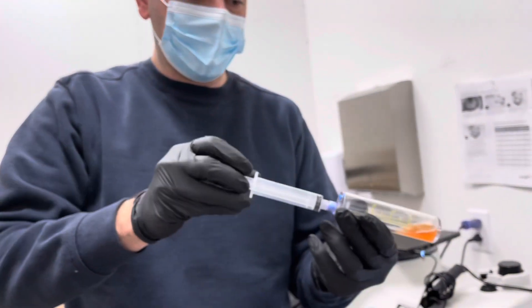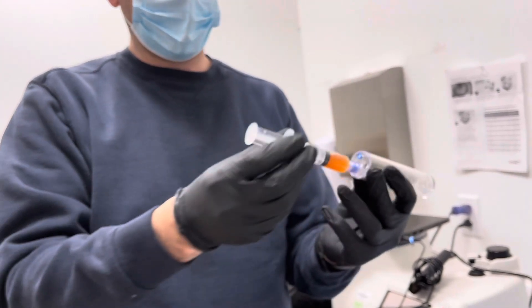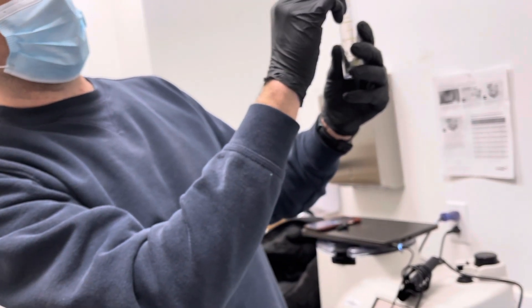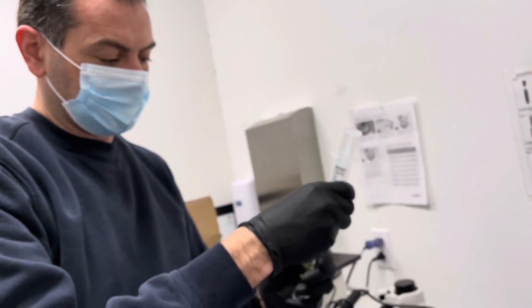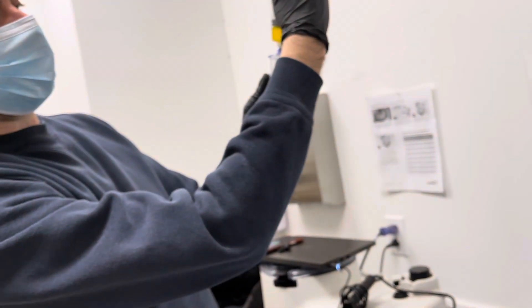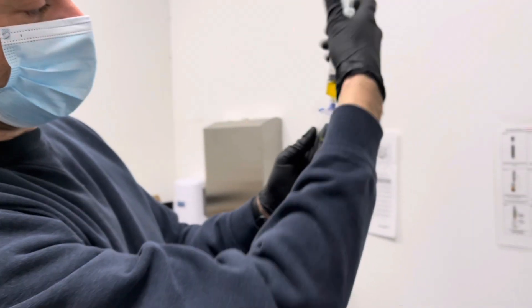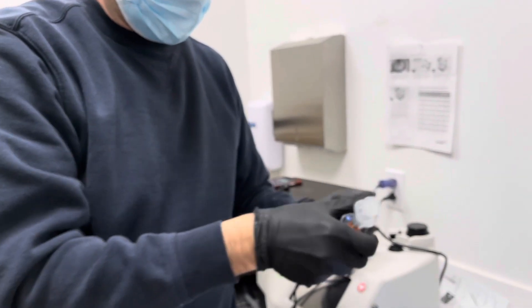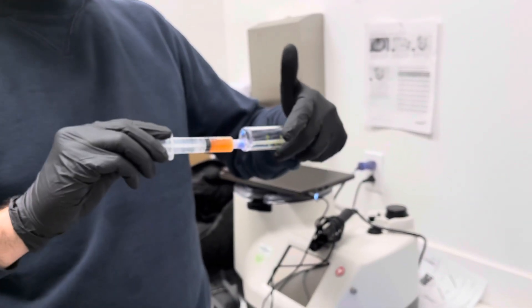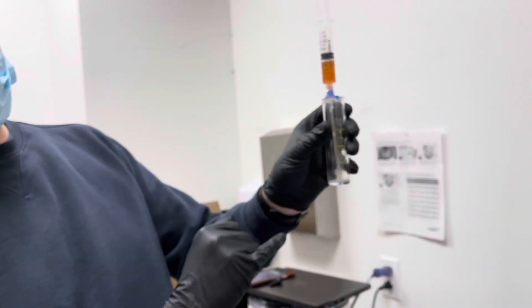Then we just draw it into the syringe. We've got four cc's there, so if I want to add that extra fifth cc — it's easier to register it off there — add one ml and then just draw that up. That gives us the volume we described at the start, so it comes out pretty much dead on to five cc's.